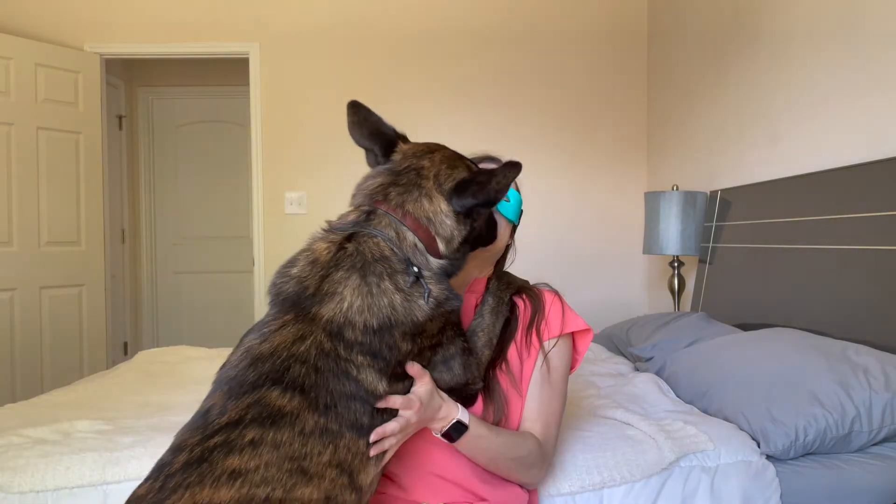I love that it looks like a superhero mask. One major advantage of this mask is the eye holes — I can obviously talk to you while I'm doing my heat compress. You can go about your day with the mask on while still remaining productive. You can do it at work, while you watch TV at the end of the day, while you cook — you can use this heat mask while you do anything around the house.